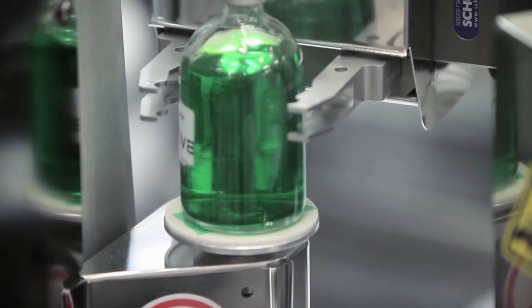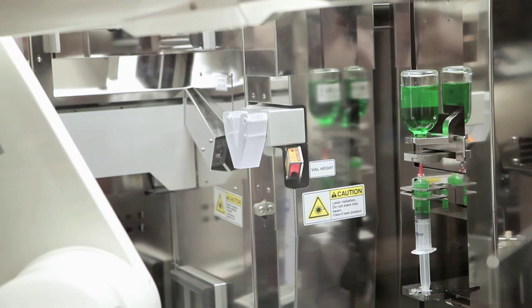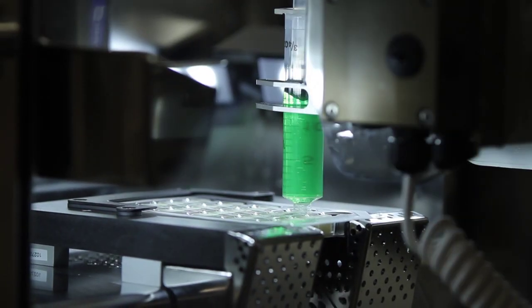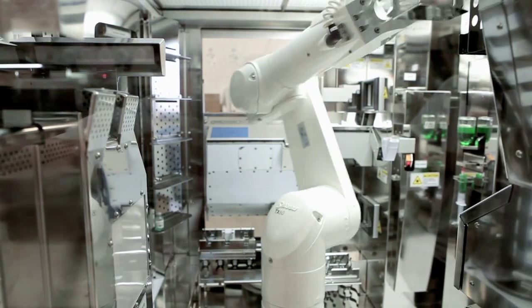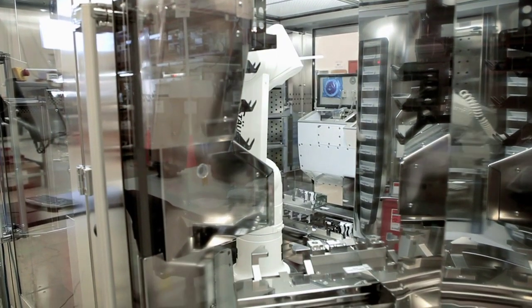The system is helping in safety, productivity, and efficiency. Safety is pretty obvious. The system does exactly what it's told to do and does it the same way every time. There's no way that any human being can do it that way. Productivity is because the system can actually do more than an individual can do.